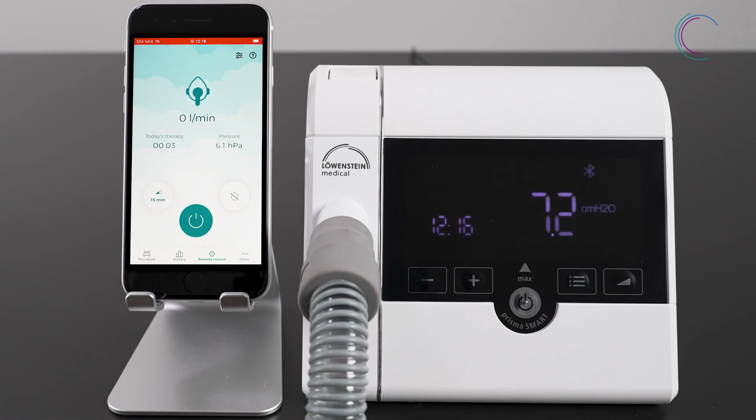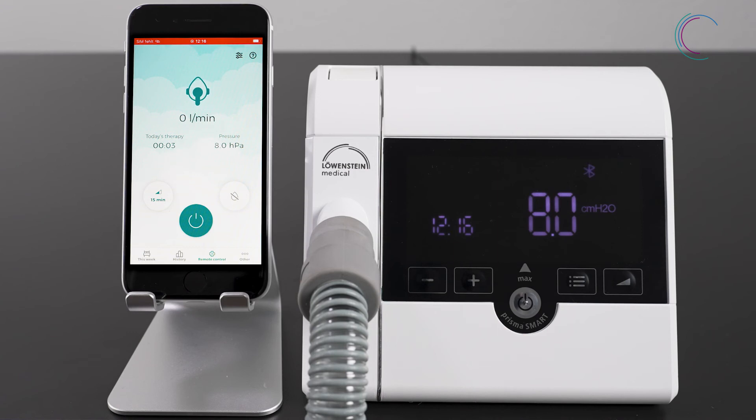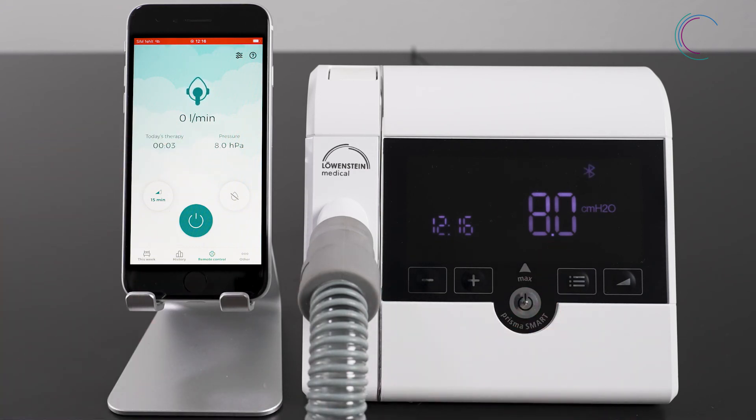The pressure is then increased step by step to the set therapy pressure. You can restart soft start anytime during your therapy whenever you need a lower therapy pressure to fall asleep. And now have fun with Prisma App.